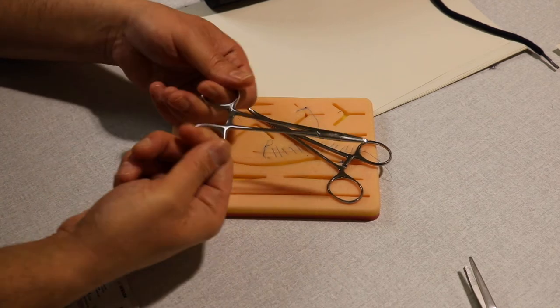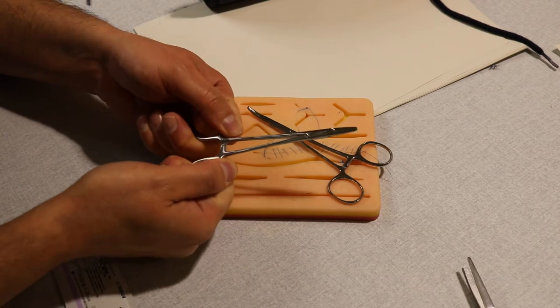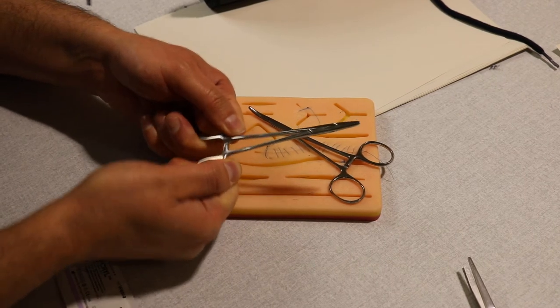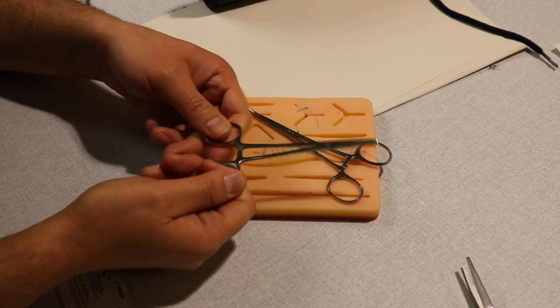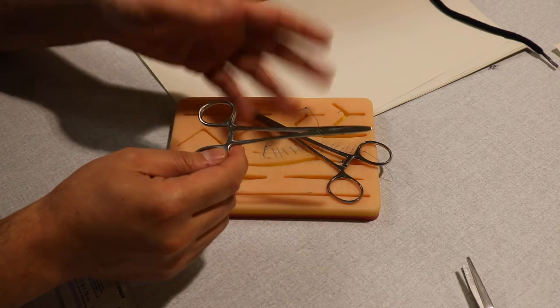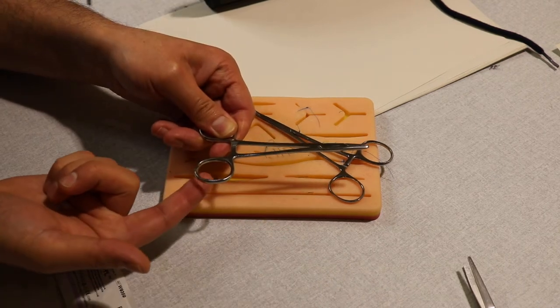Opening it like this is not going to work. The only way of unlocking this is to stabilize one limb and push the other limb up. It will open by itself.